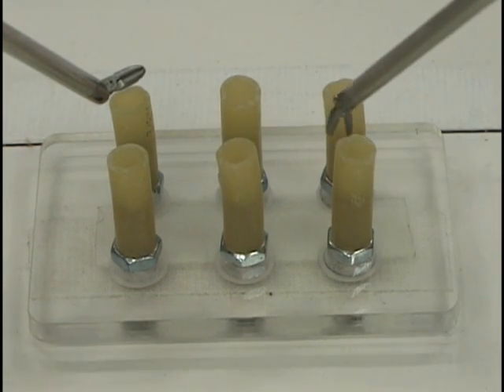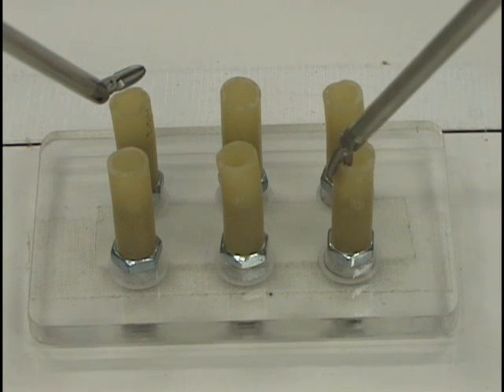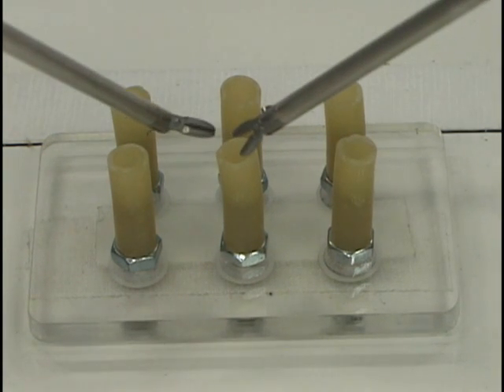Again, you will be focused on the dominant hand, but be sure to keep the tool tip of the non-dominant hand in your field of view.